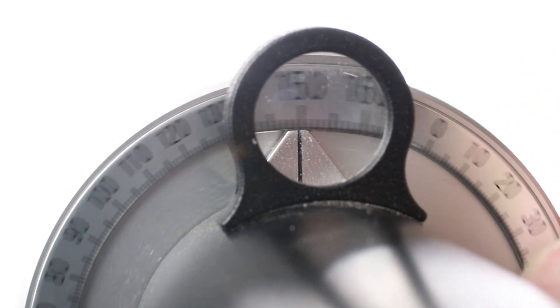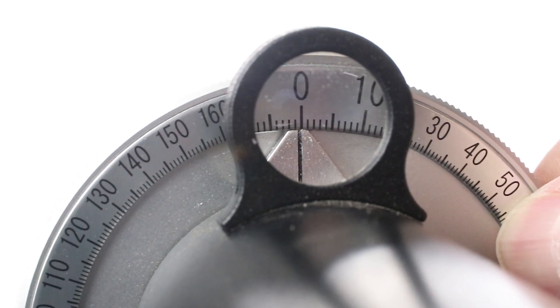To get started, your power drum can be anywhere. I do want your axis wheel to be at zero, so rotate that around if you need to, so that you're looking through that little magnifying glass and you've got a nice straight zero. What we're going to do here is use this lens to practice two things: one is simply getting the lens in focus, and two is getting that grid pattern — the crossover between the cylinder and the sphere lines — in that perfect center of the target. We've got a 1.50 lens here. I gave you just enough power that you can move the lens around and see movement. As power goes up, getting it centered and perfect becomes more and more difficult — wait till you get to your first minus seven or plus seven. That's why I want you to practice. That's all this lens number one, this first lesson, is about.